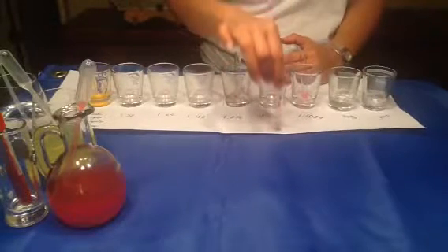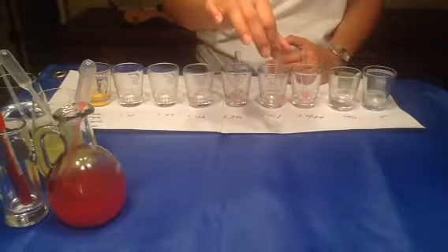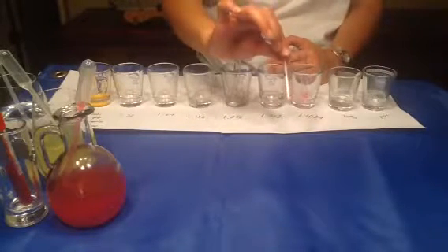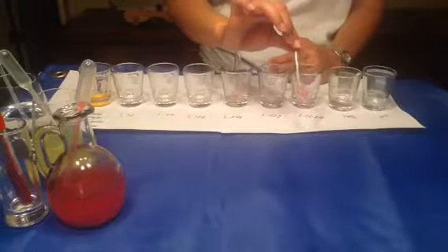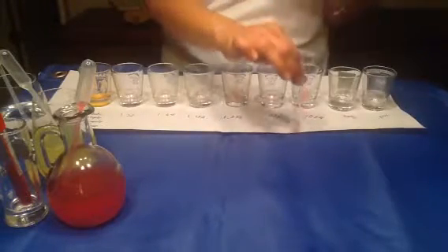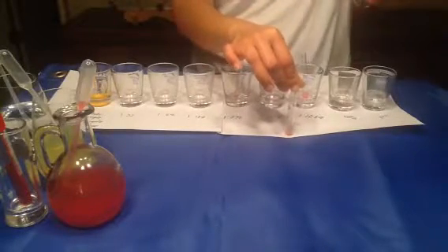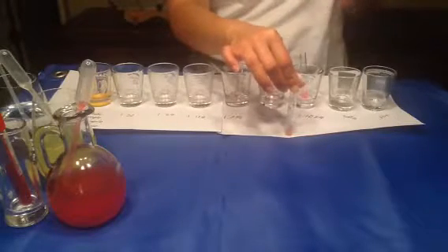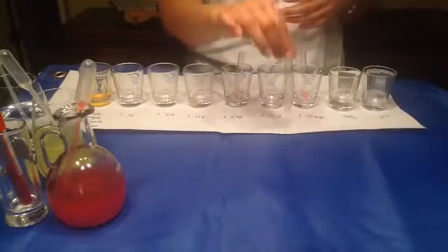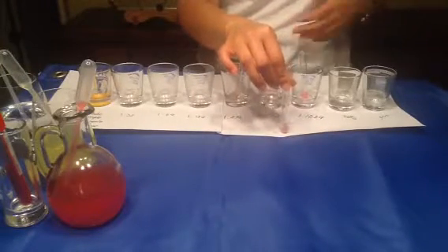If the test is a true positive and not a false positive, you're not going to see the agglutination at the bottom of this tube, because when you incubate patient serum with O cells at 4 degrees, they have the cold agglutination reaction, and 37 degrees Celsius removes the bond of antibody and antigen. So that's why we're not going to see agglutination after we incubate at 37 degrees.